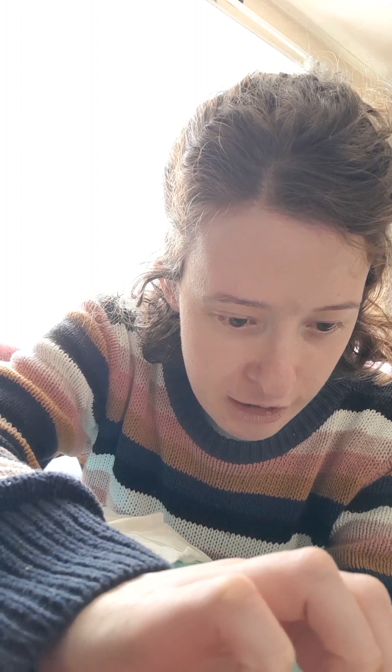Sorry, I'm talking to the hearing aids. You've got to talk to the hearing aids when you're trying to put it in. My hands are better today — that's good.